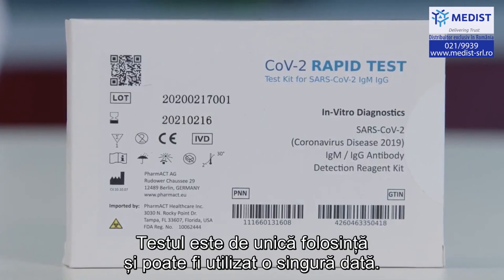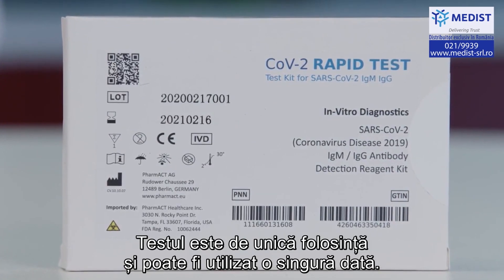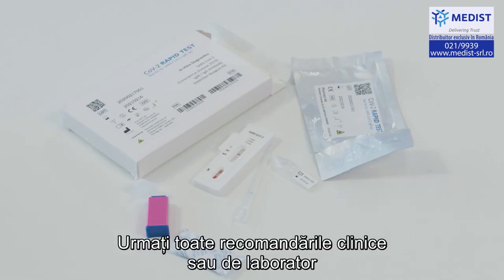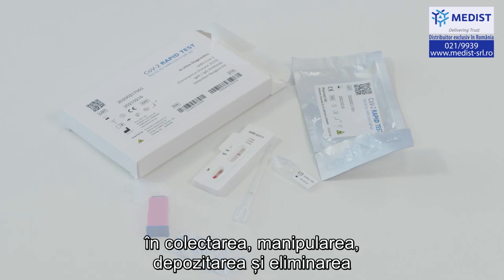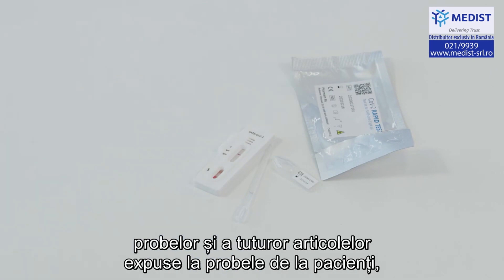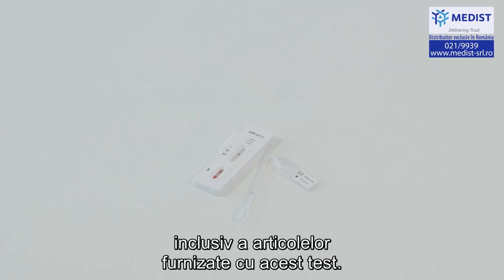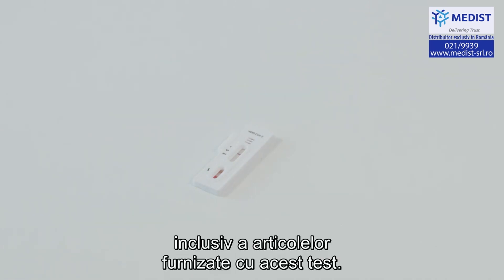The test is for single use only and is disposable. Follow your clinical and/or laboratory guidelines in collection, handling, storage and disposal of patient specimens and all items exposed to patient specimens, including the items supplied with this test.